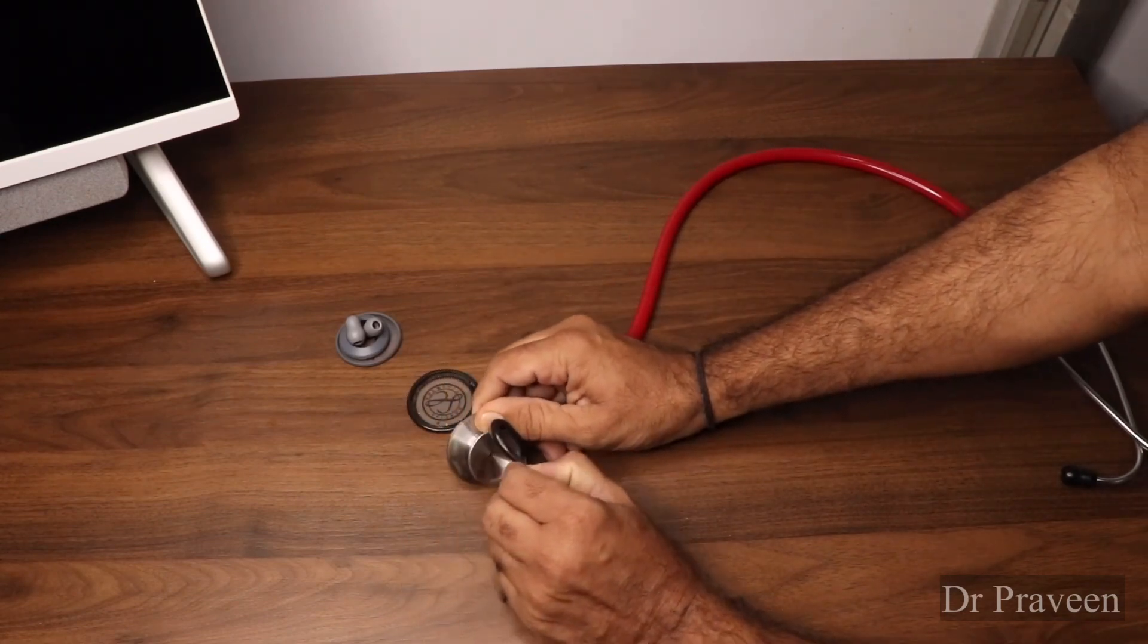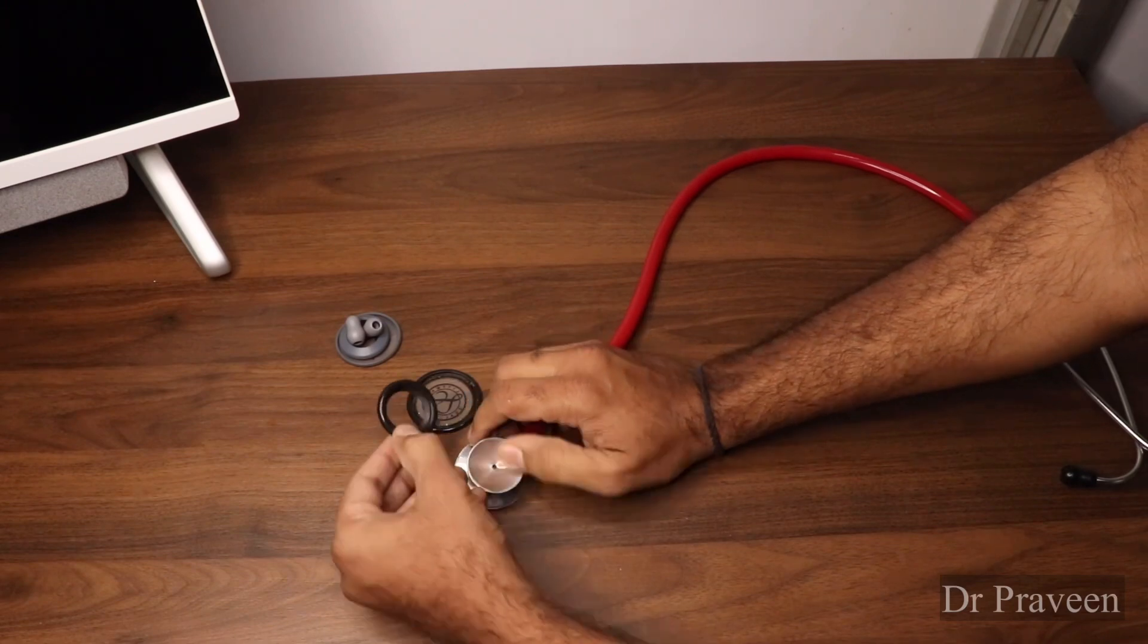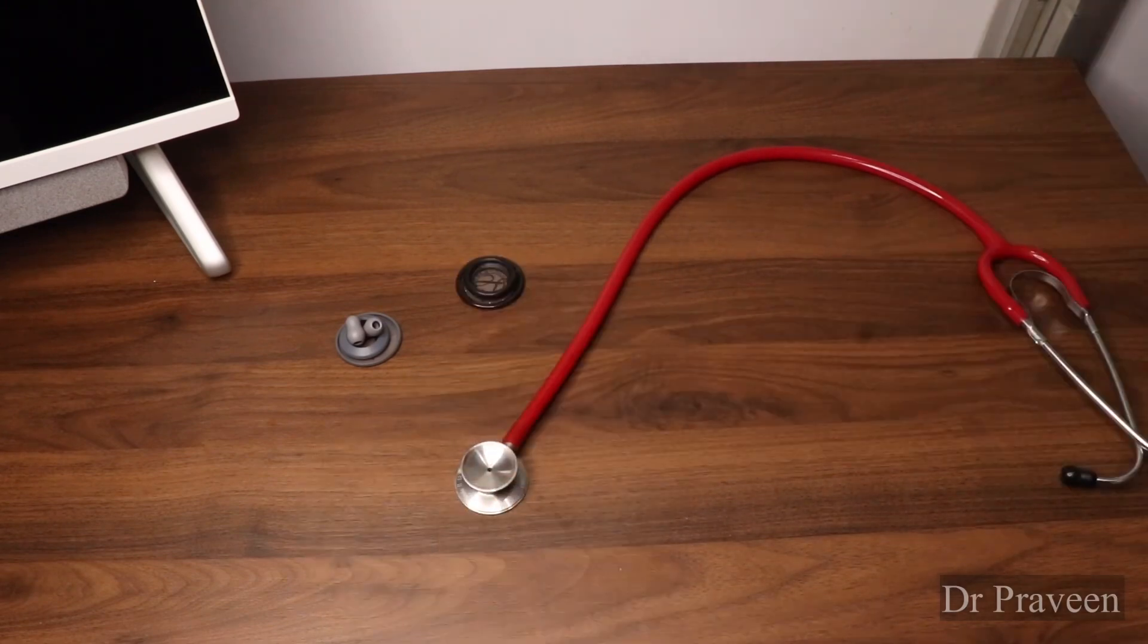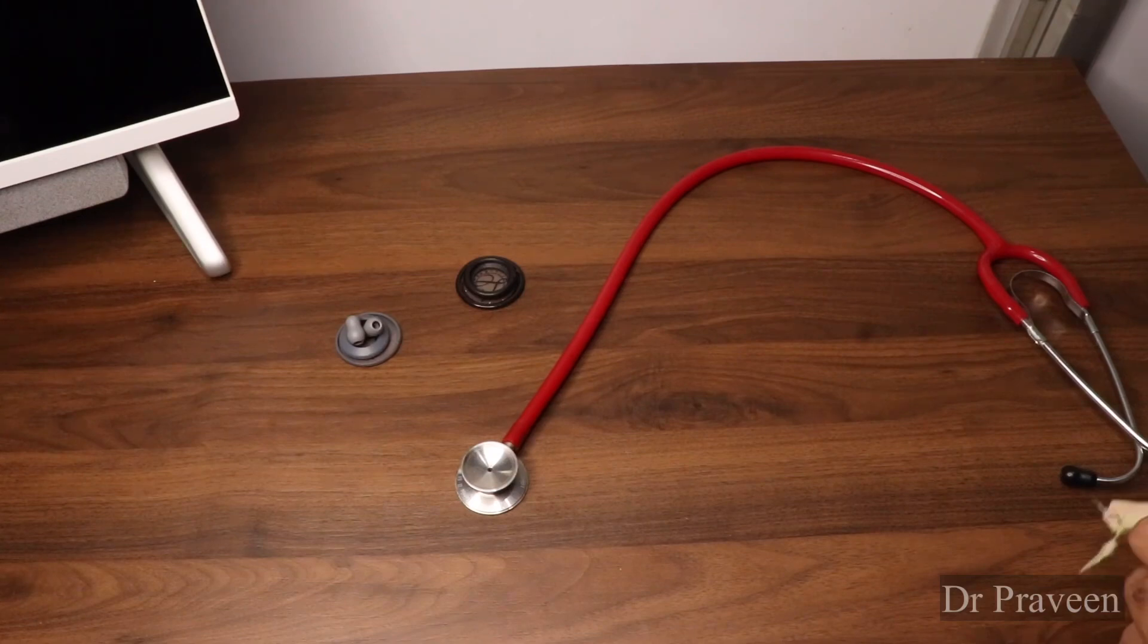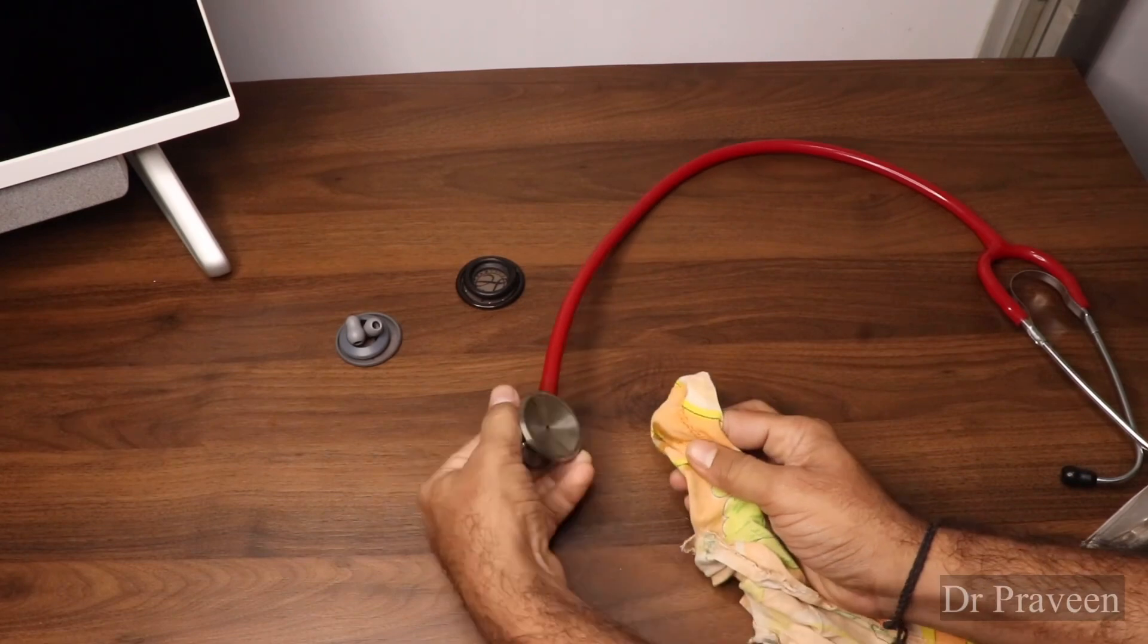We'll remove this one also. It's very easy to remove it. Then we need to clean, apply some spirit and clean the belly.